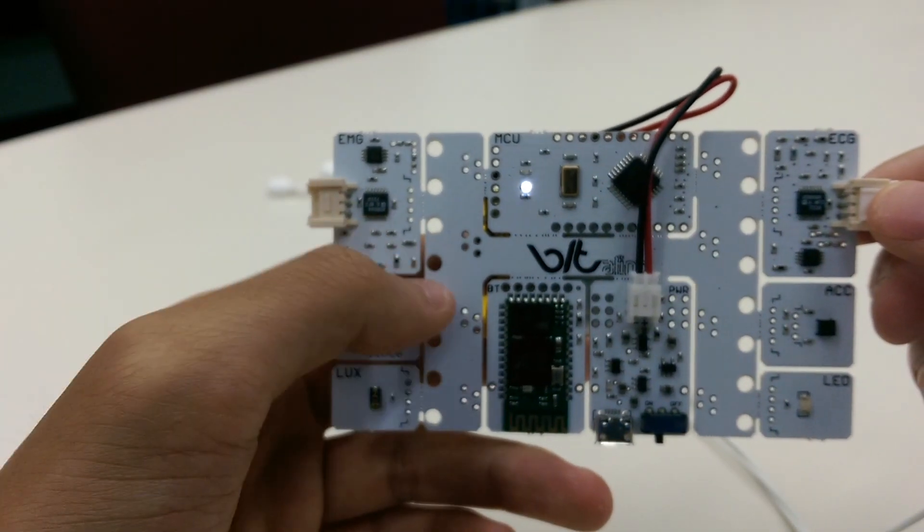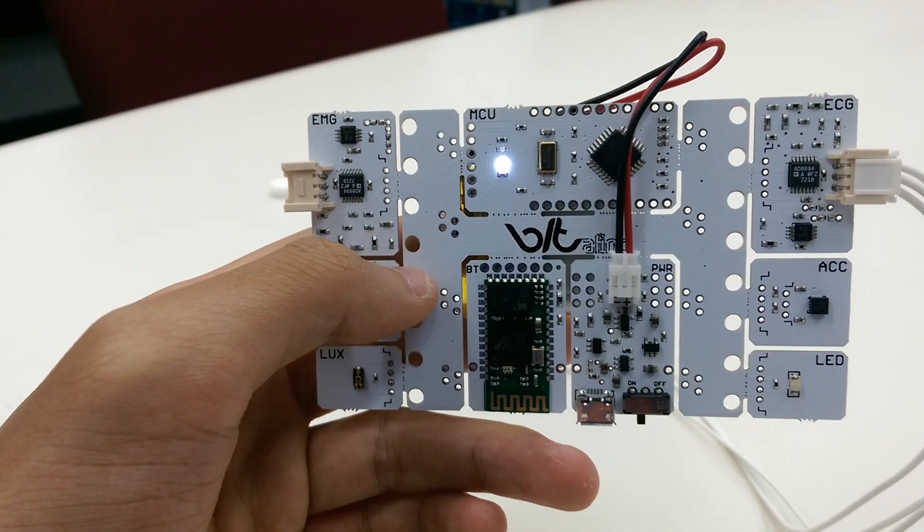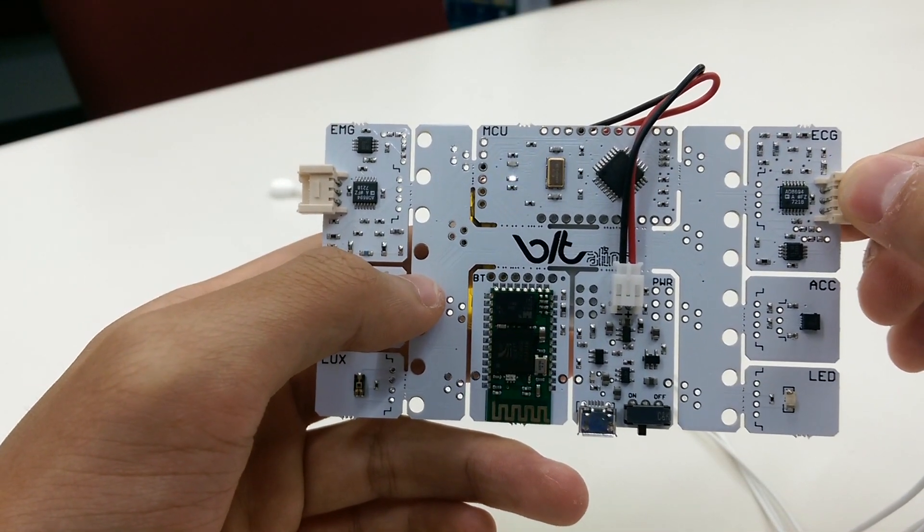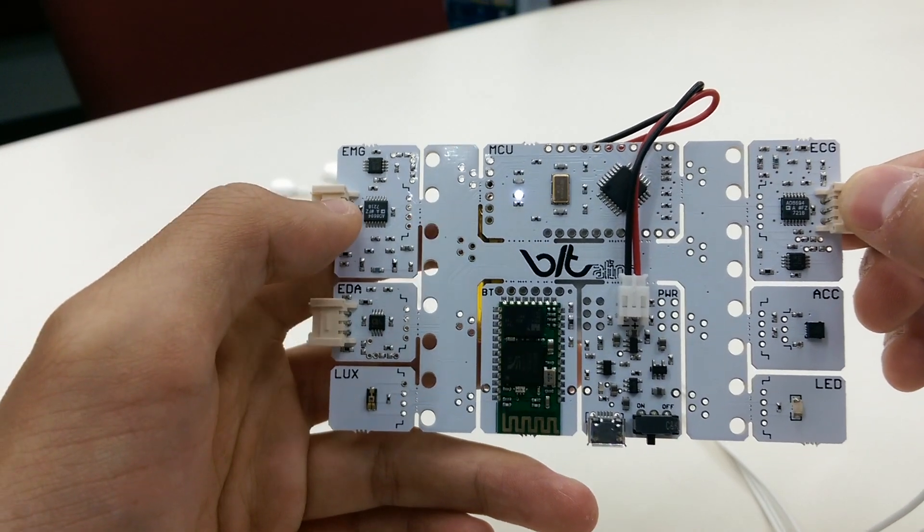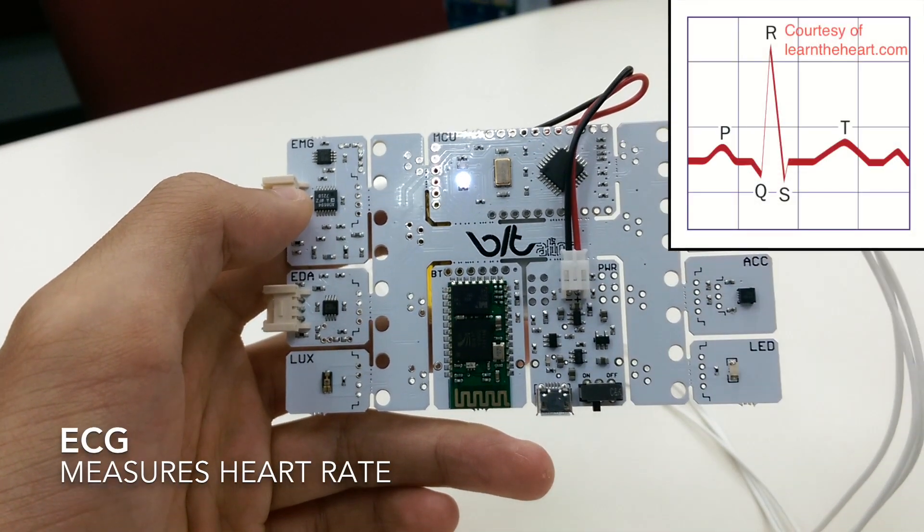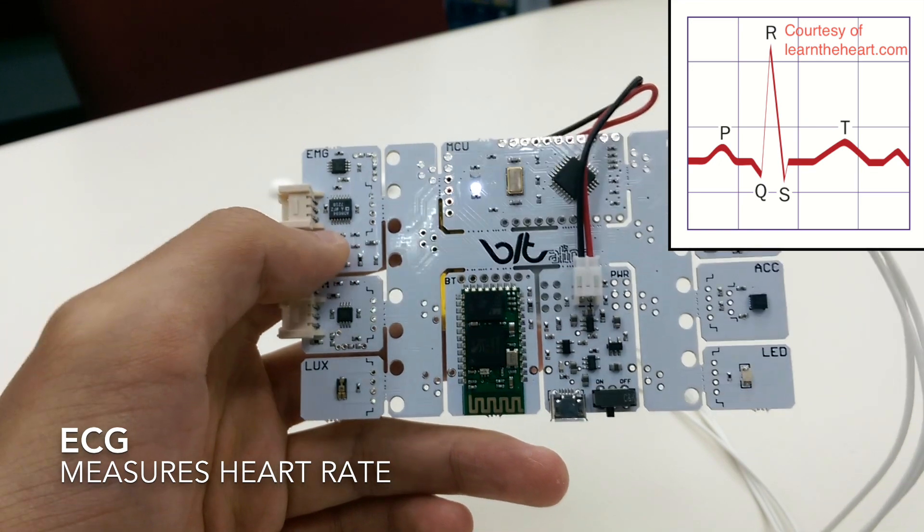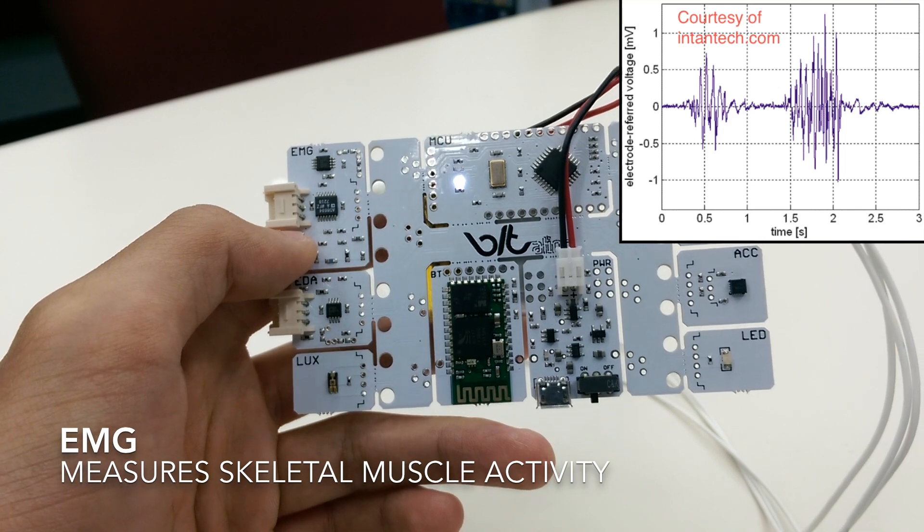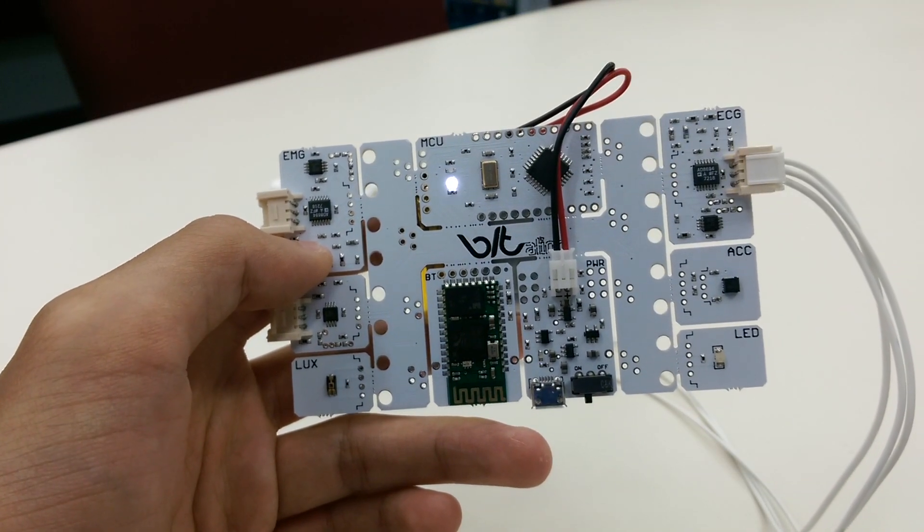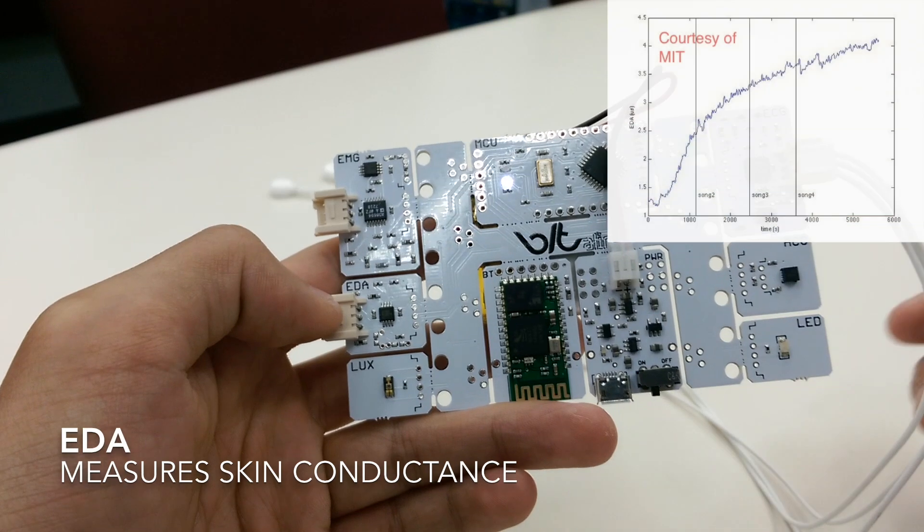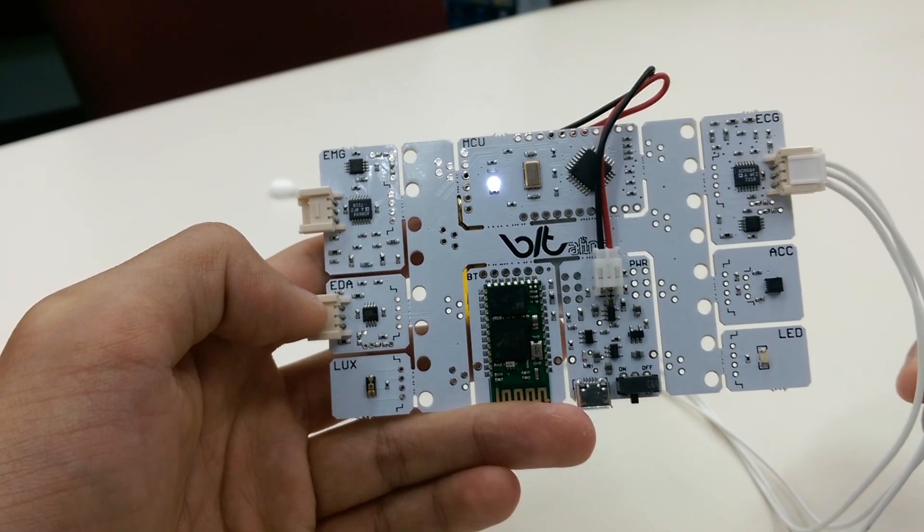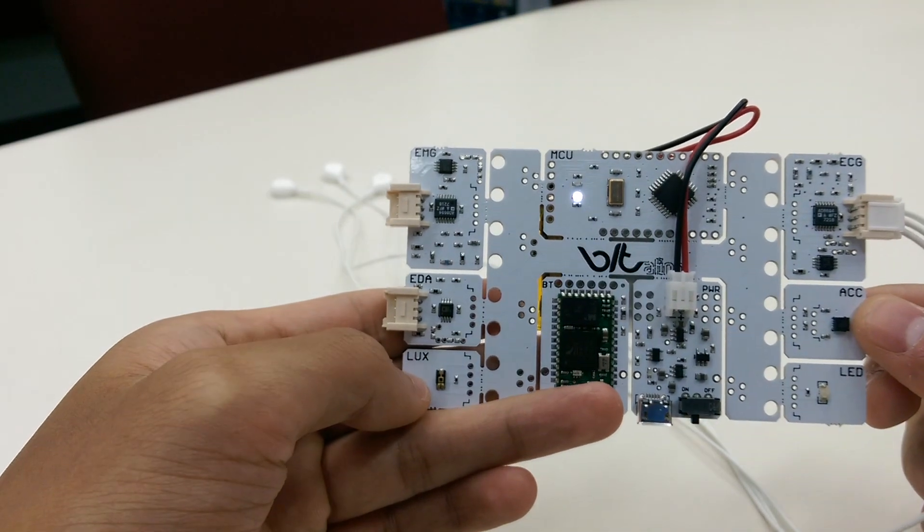Okay, now looking more into detail at these actual pieces. The ECG collects heart rate data and outputs it in a basic 2D graph. It shows the classic QRS complex. The EMG collects muscle activity that would appear on the skin, and then the EDA collects skin activity, skin conductance I believe.